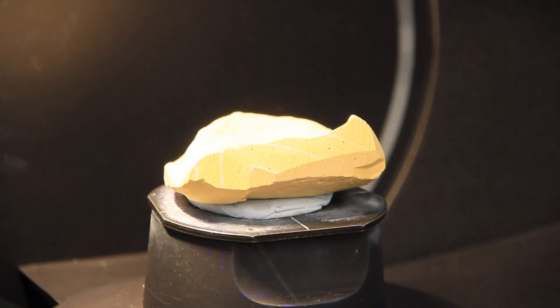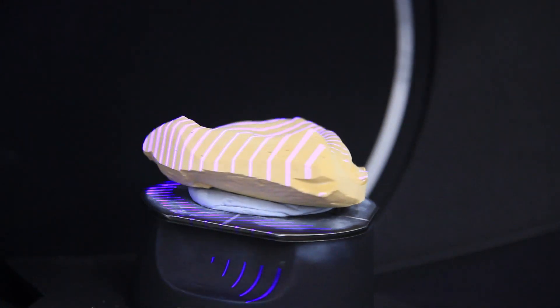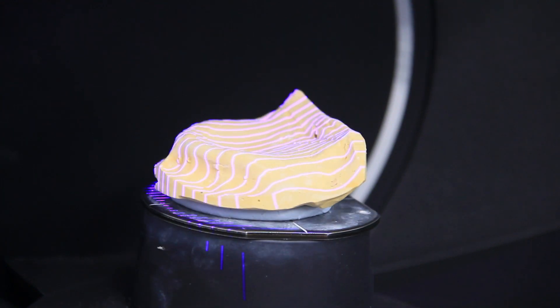The models, along with the wax, are scanned in a high-tech scanner. These scanners are highly precise and accurate, scanning at a microscopic resolution.